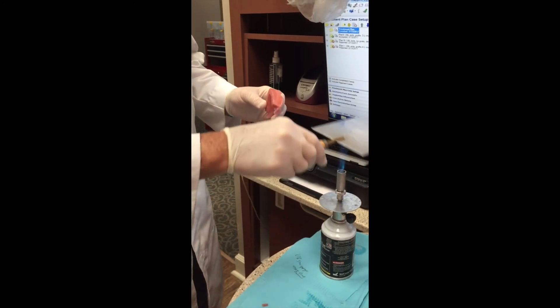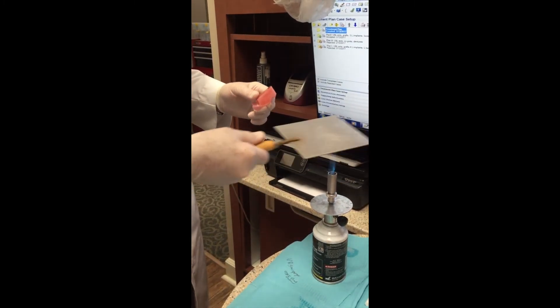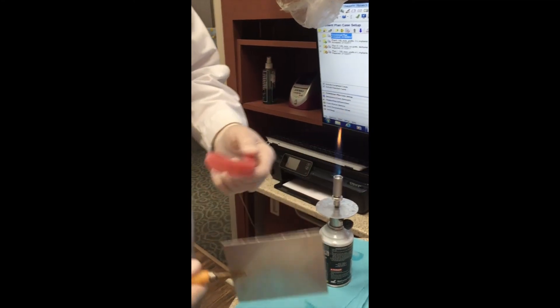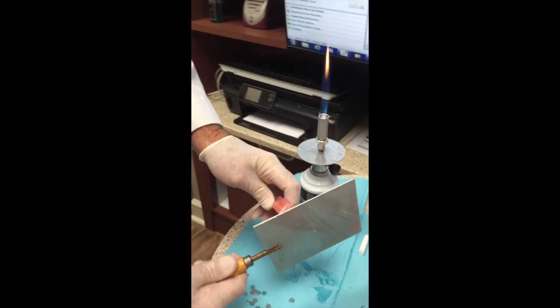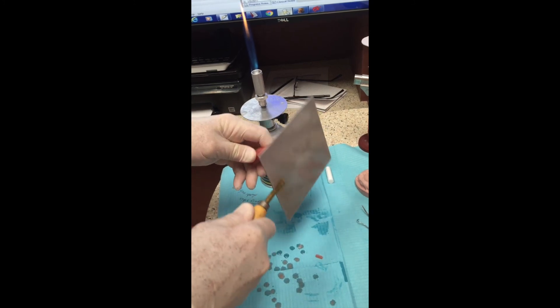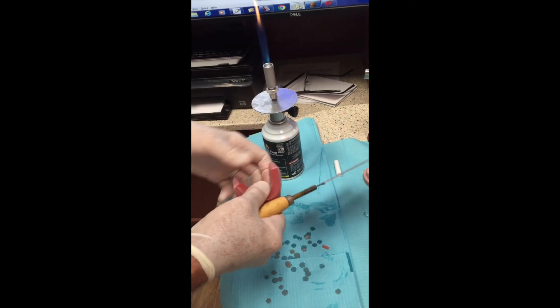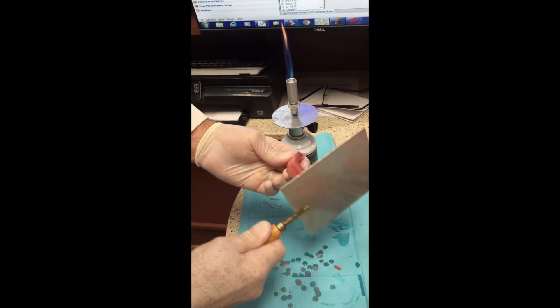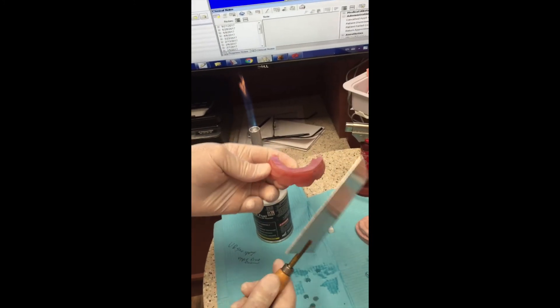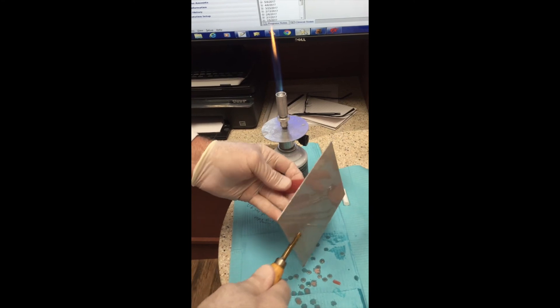It's important to have a hot plate and a flame — a Bunsen burner. One of the things you want to do is always keep the hot plate moving through the flame to warm it, potentially flip it over, go round and round. The wax rim should be over the occlusal plane where the teeth are. A lot of labs will just put the wax on here, so it leaves a little work for us to reshape it to where the wax rim fits where the teeth actually go, over the ridge. We're having to shape this up, and the lower anteriors want to lean forward about 15 degrees. Usually I end up having to reshape the posteriors on the lower wax rim and the upper to fit the occlusal plane.